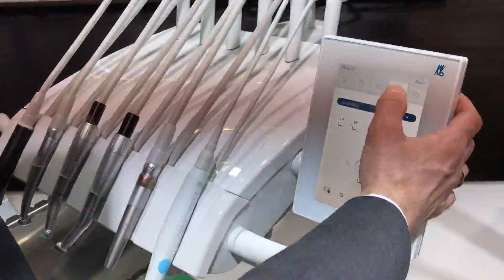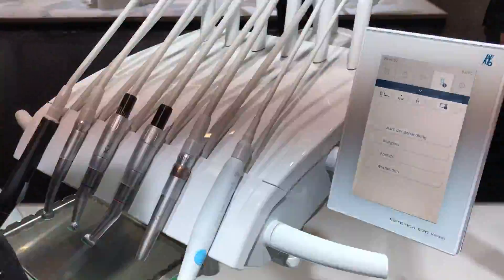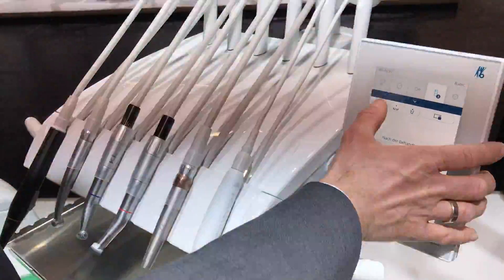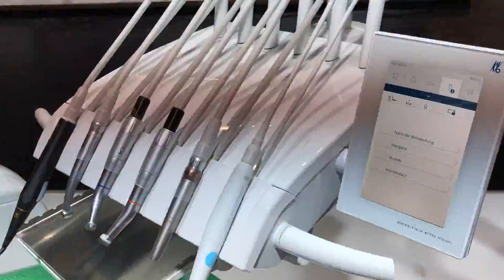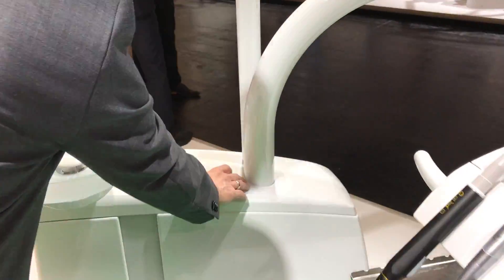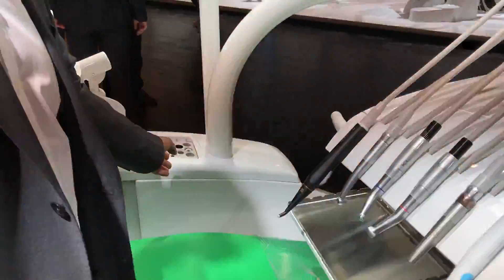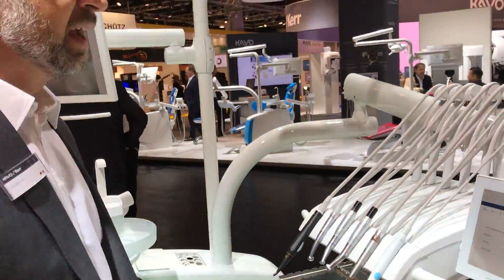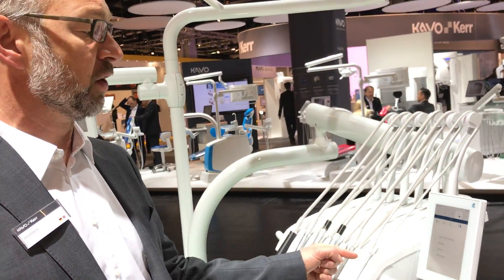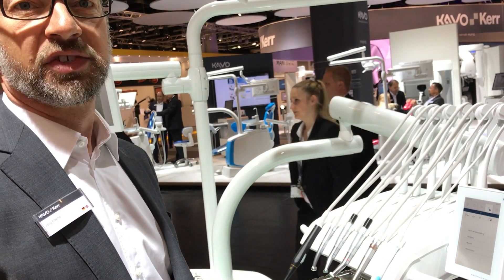In this tab we can open the different cleaning programs. We have four, and you press only this button and the spittoon is moving into position. We can open the cover easily and put the instrument hoses inside the hygiene center. After pressing the button after treatment or in the morning or evenings, the program works automatically.